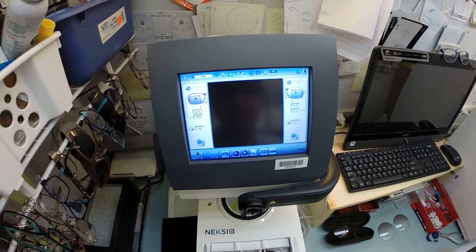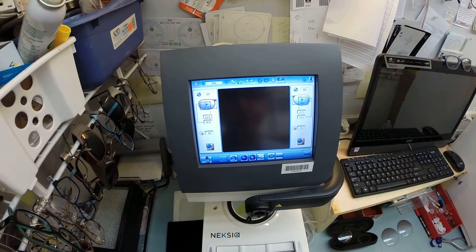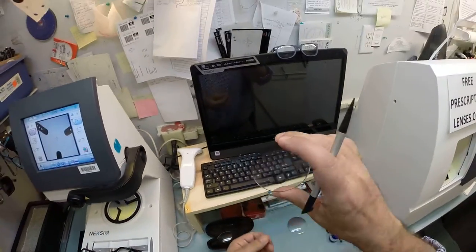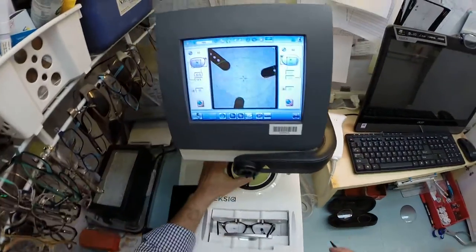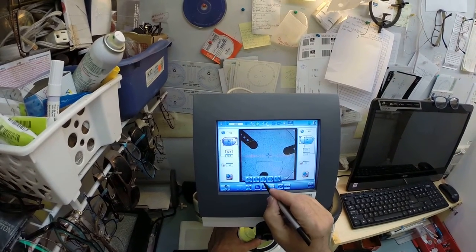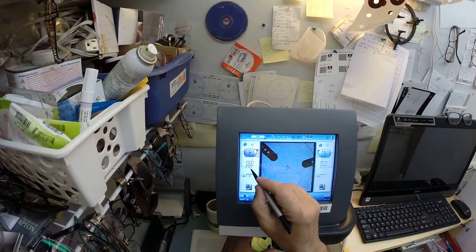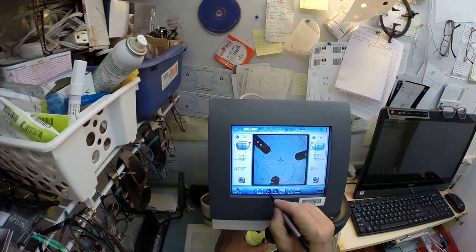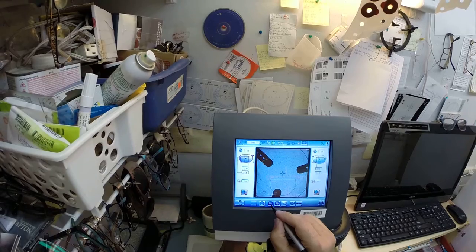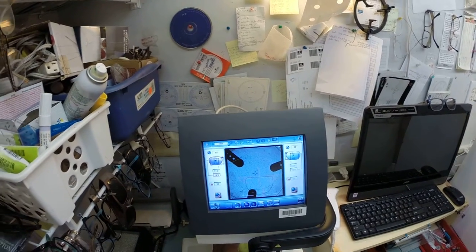In just a moment, your shape is going to pop up here on the computer. That is good. I'm going to take your right lens—let me just make sure that is the right lens—place it onto the platform. Actually, I want to cut a bifocal lens, and I'm going to go four millimeters below the center, get everything lined up just perfectly.